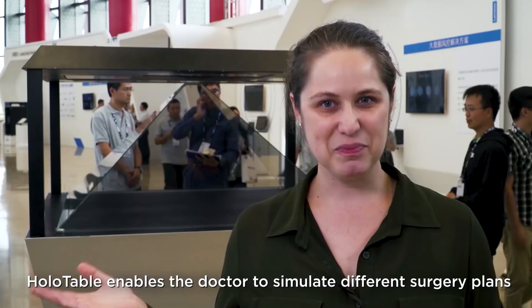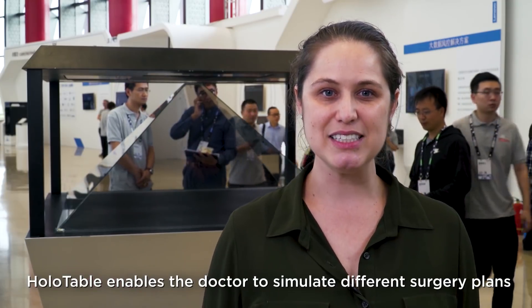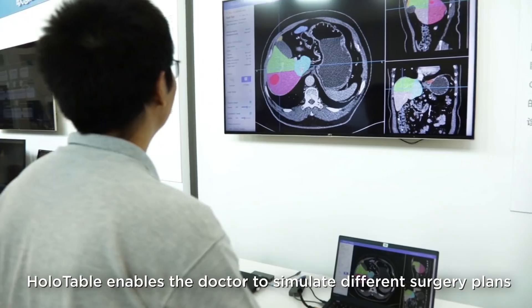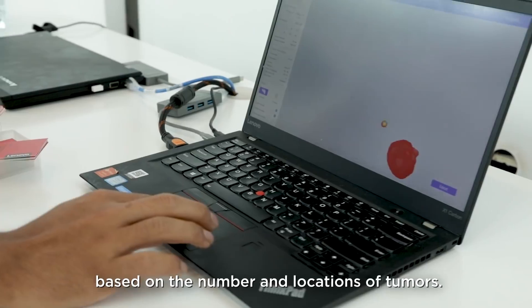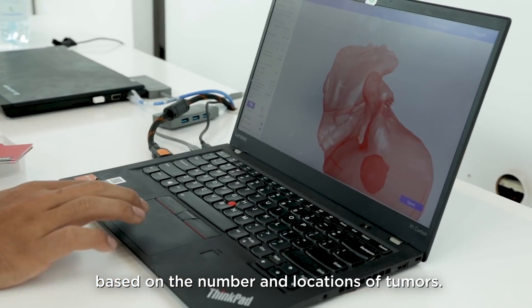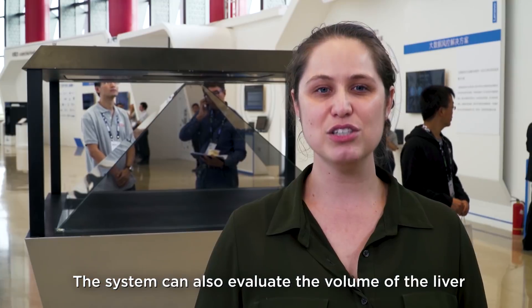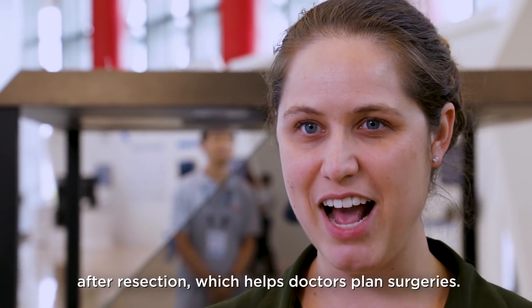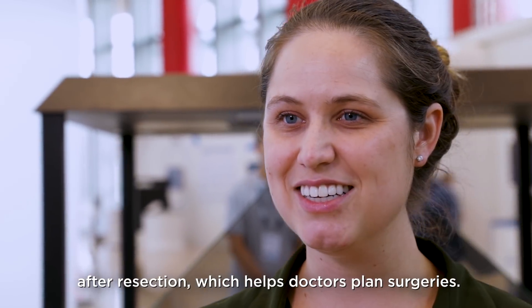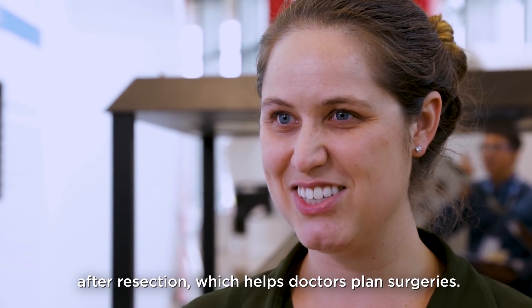Holotable enables a doctor to simulate different surgery plans based on the number and locations of tumors. The system can also evaluate the volume of the liver after resection, which helps doctors plan surgeries.